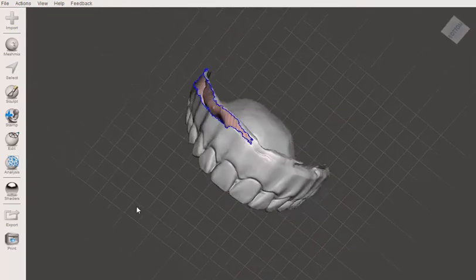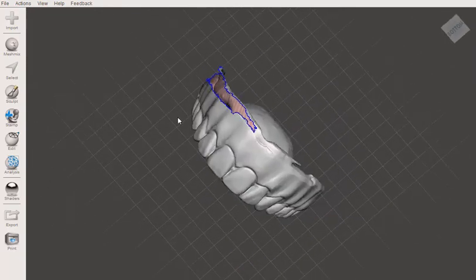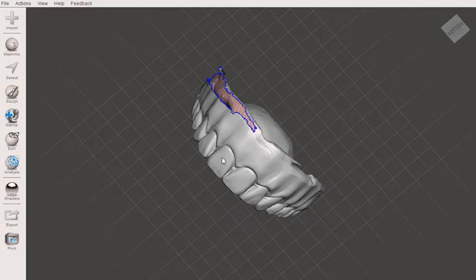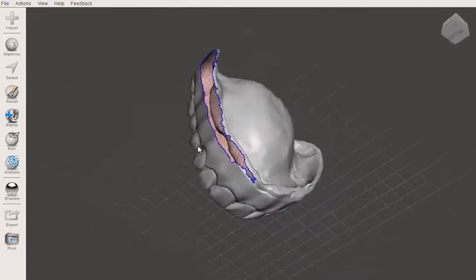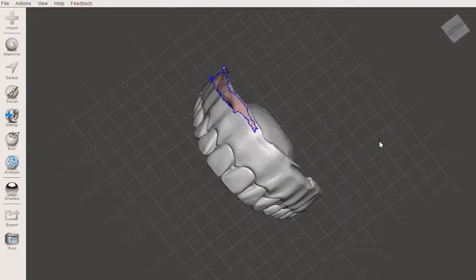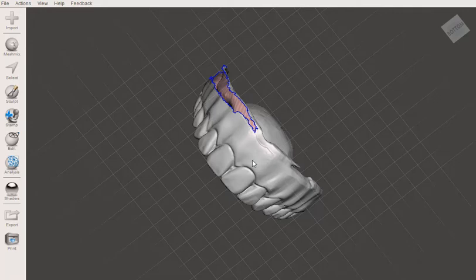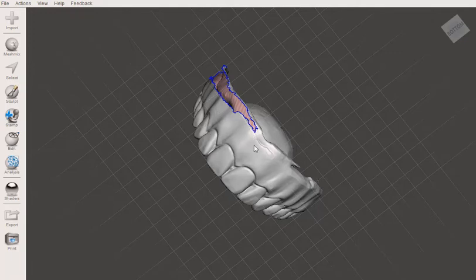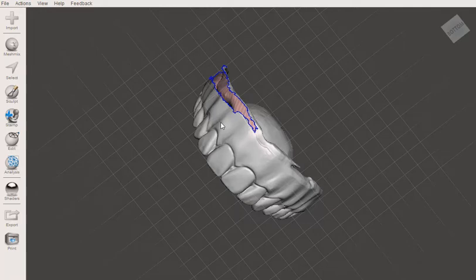She doesn't like how rolled in the bite is on this side. She thinks the teeth are super white and unnatural looking, so we're going to be making some new dentures. But I wanted to show you how to repair a denture because I want to print two sets of this. One for just general aesthetic work. I'm going to mark all over it and mark where we want the new lip line to be, the length of the teeth, all of that stuff. And then the other one I'm going to do for a wax rim and master impression.